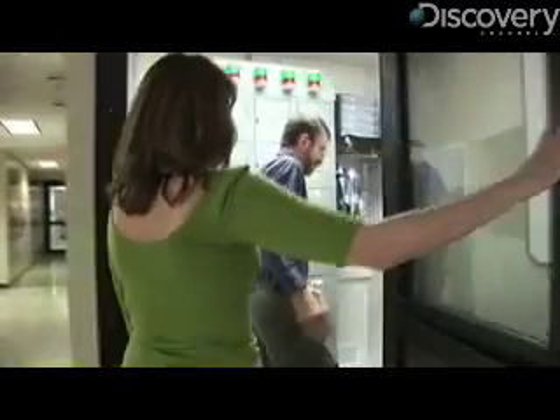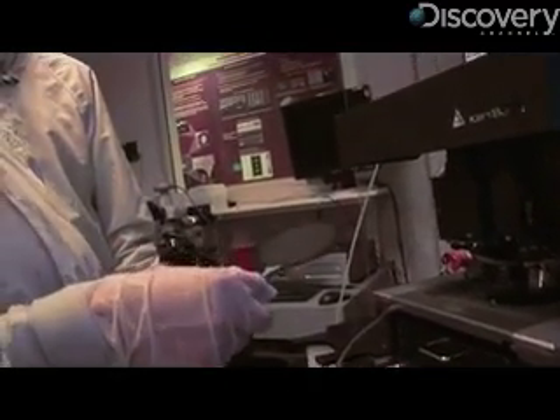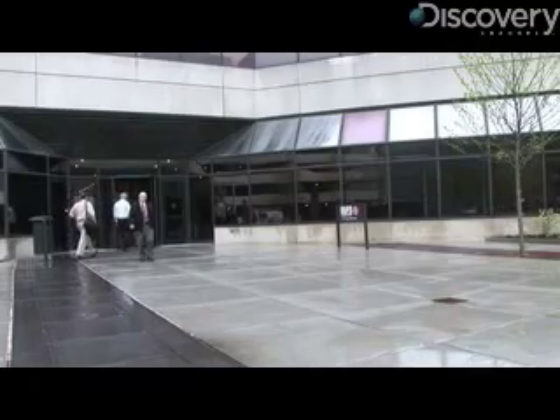To find out how and where these little MEMS mirrors are made, Bernstein took us into his clean room. It all happens in the microfabrication facility — taking designs that started on a computer and turning them into reality. The result is little chips that do something: an endoscope mirror, a microphone, a gyroscope, or an accelerometer.